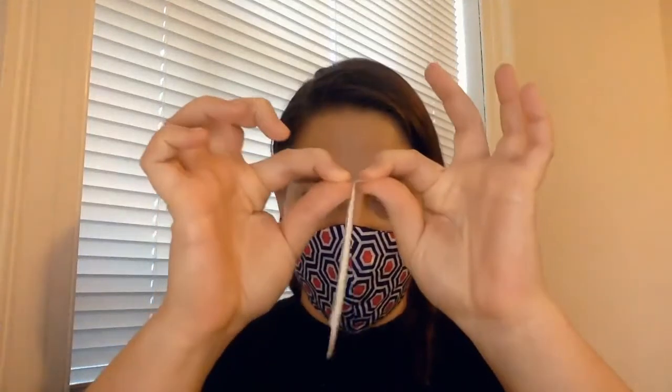The last thing in here is my q-tip. Notice it's not as long — it's not going to go all the way up into my brain. I can actually just swab inside the nostrils because the tests have gotten sensitive enough that you don't need to go way back to try to pick up virus. It's sensitive enough even if you have a very small amount just in your nasal passage. I know some people who are doing spit tests — those are working well now too. So I'm going to go ahead and open up my q-tip, just exposing it without touching the cotton part so I don't contaminate it. I'm also going to open up my tube, making sure I don't touch the inside, and set the cap down.